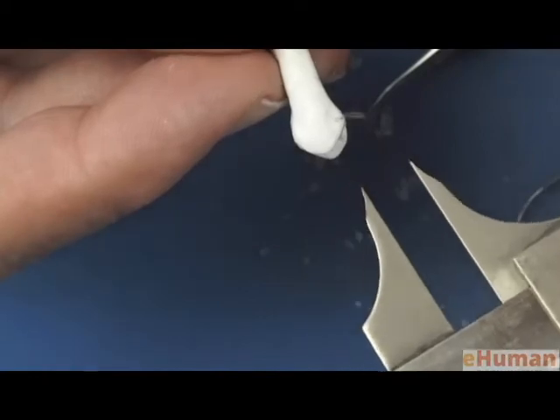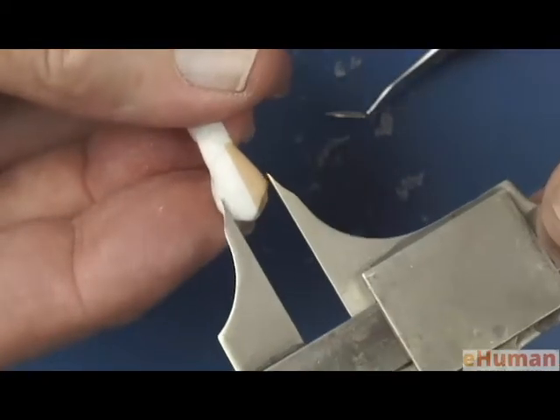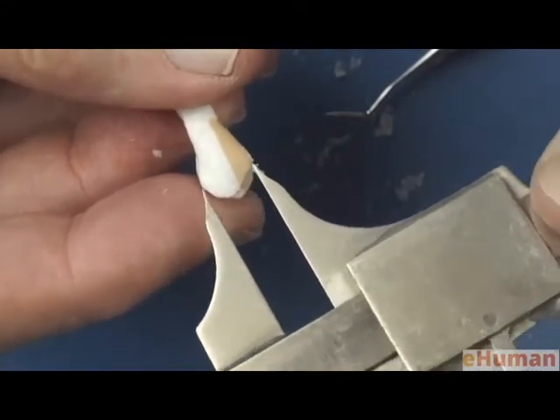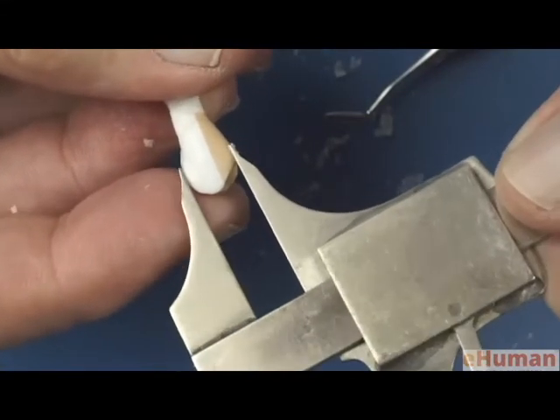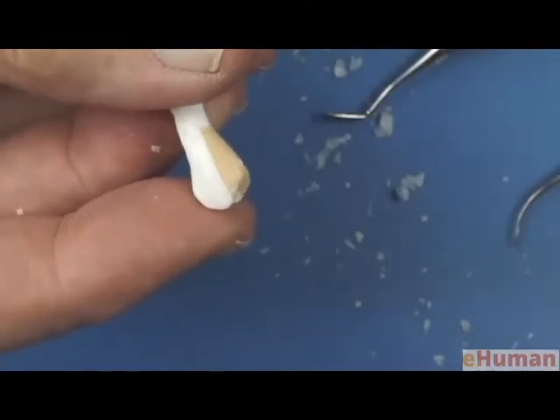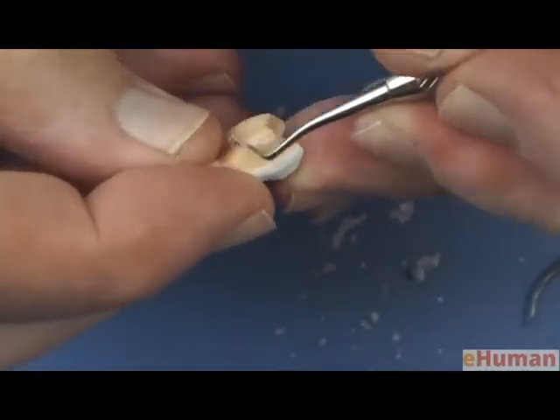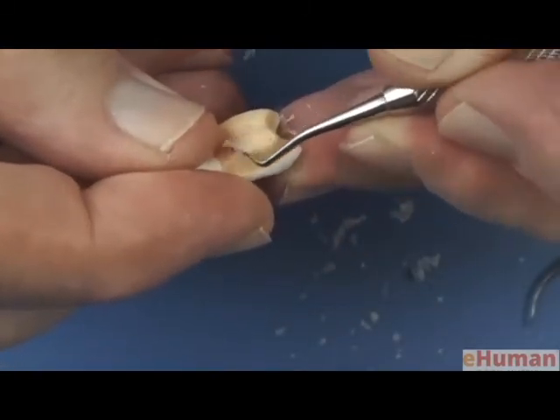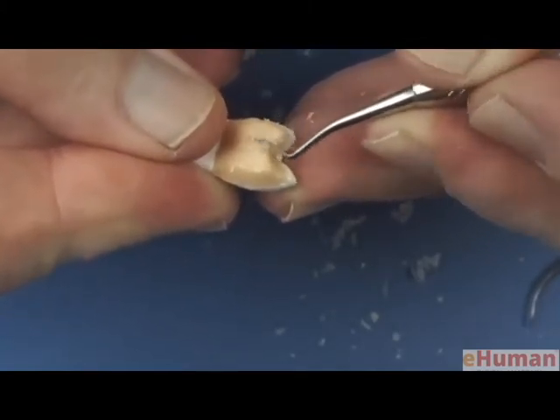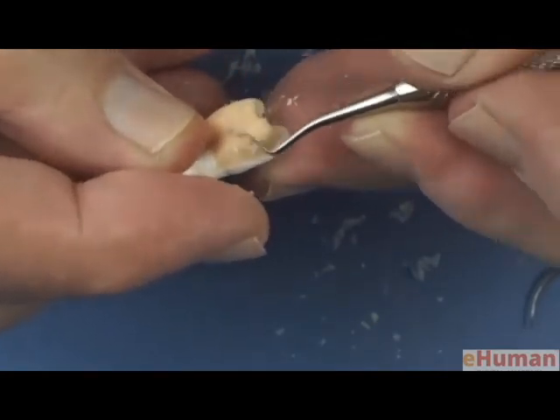So there's our mesiodistal dimension on the intact tooth. So let's pick up the other tooth, and let's just do this. See, if I mark here, I can take my caliper, my Boley gauge, and it creates a nice little groove in the tooth that tells me how much extra wax that I have to remove, because I added quite a bit too much. So I'll go back now and carve away the excess, get a smoother surface here.